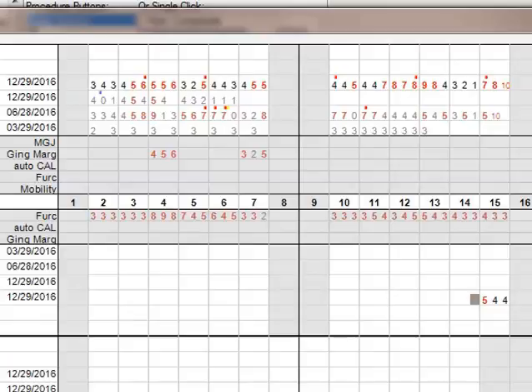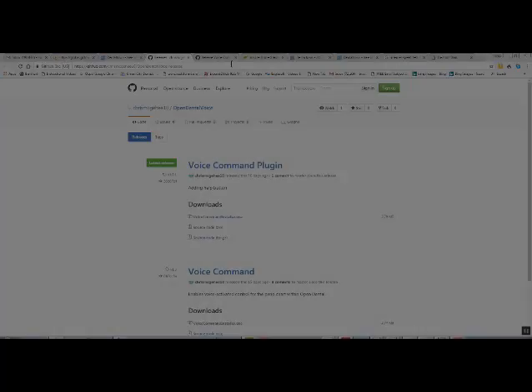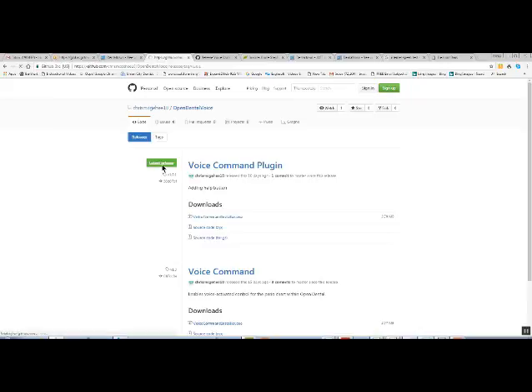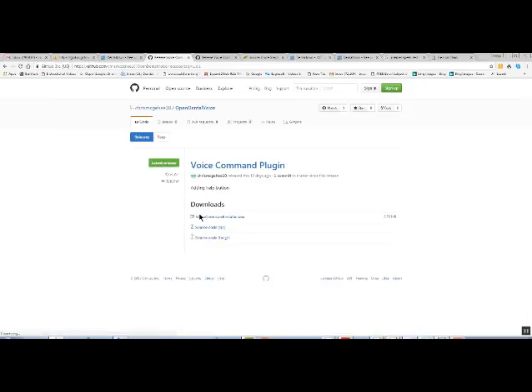Now that you can see that it works, let me show you how to install it. It's very easy. What you want to do is go to this website, make sure you're clicked on latest release here, and then download the file right here.